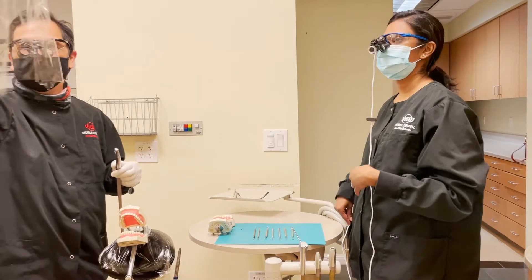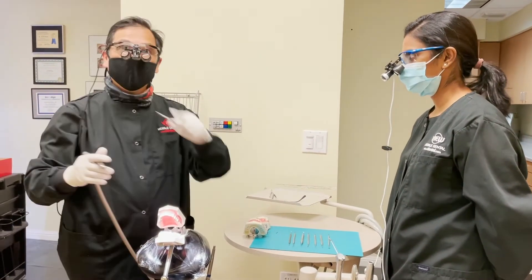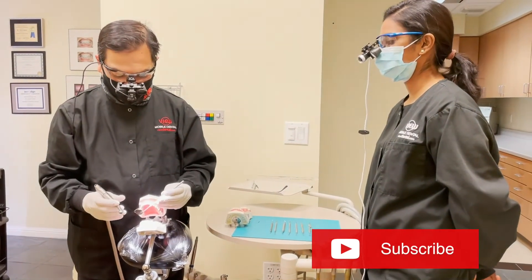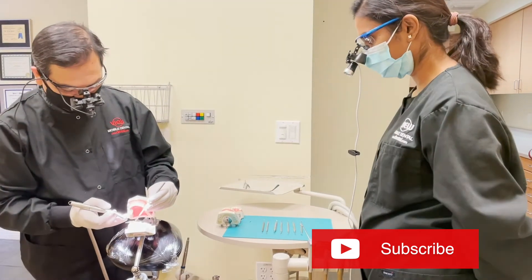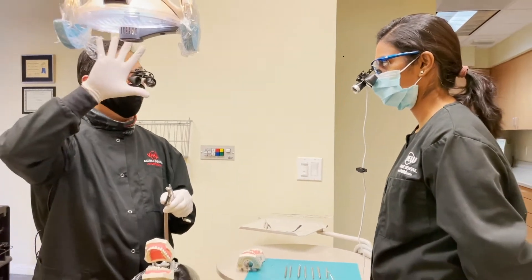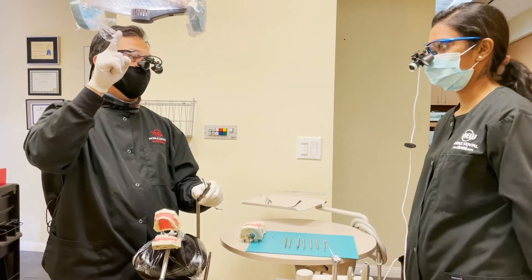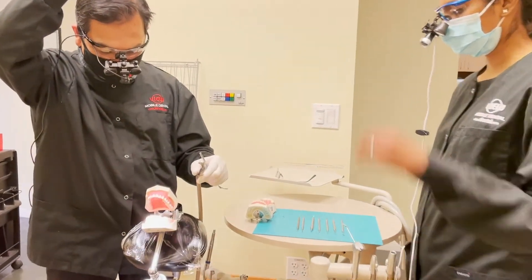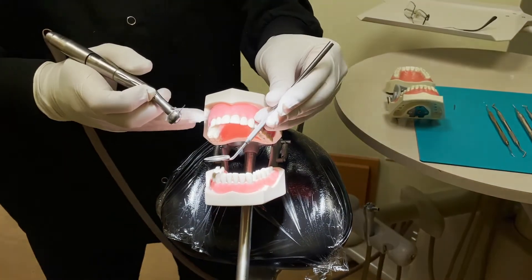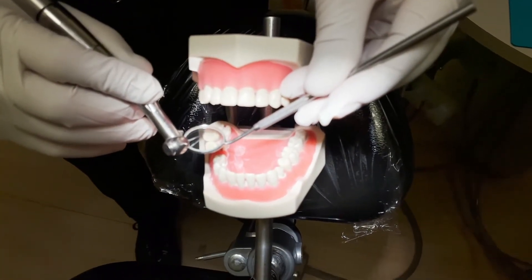You can have a light source like what you've got in the dome. If you're doing this at home you don't have that light source - you just have a bench with a light. So you have to figure out how you're going to maneuver. You have to be able to practice this because if they have this in the operatory, they have this light. You have to be able to bounce the light off of the mirror and then be able to see.